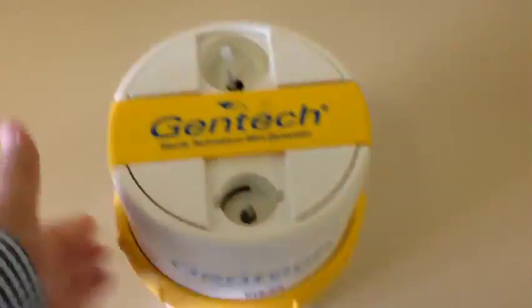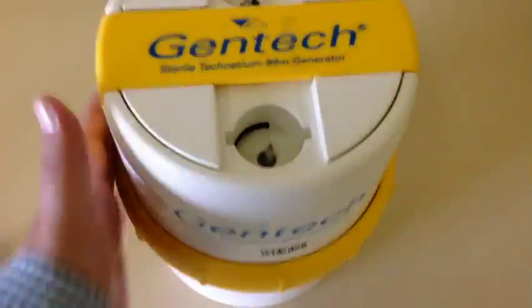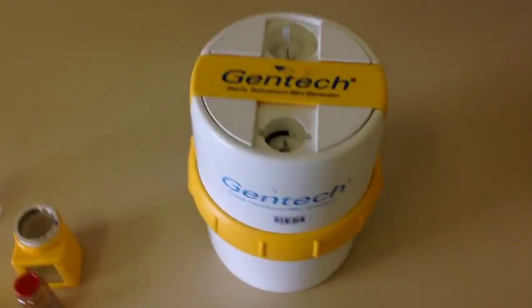So if we pop the lid back on that, and that would just screw up to secure it. And again, you can see that it's all labeled on the outside.